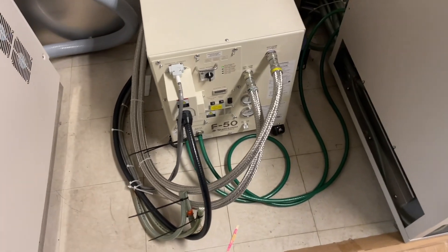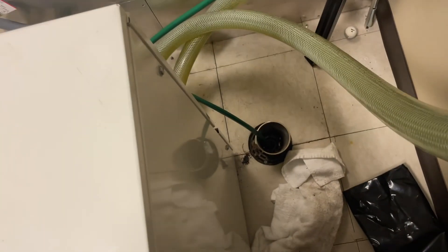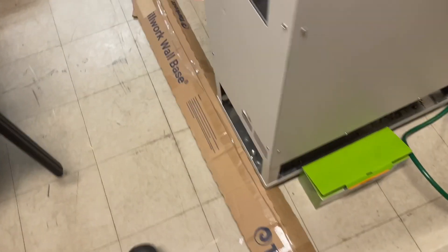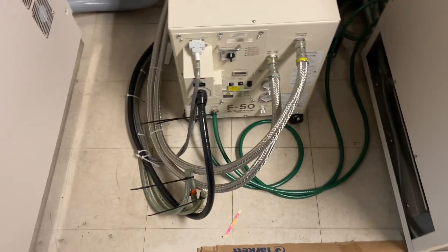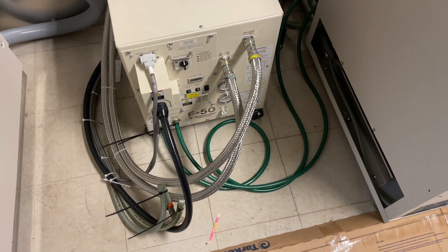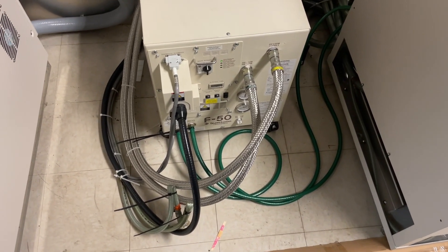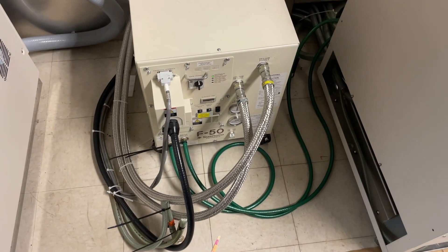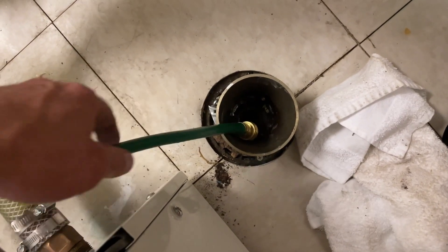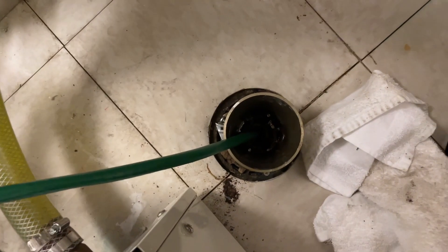Unfortunately, I'm gonna have to cut this one short. I got the helium compressor going by just feeding it city water and draining into there. We're gonna have to get back to this tomorrow — they already have to cancel all the appointments, and this will get them going through the night and keep the MRI basically sustainable. I gotta run a VRF call in the morning, so somebody else is gonna be out here to finish this up. I've got a pretty decent amount of flow here — bumped it up just a tad because the water was getting a bit warm, and it feels pretty stable now, so it should be good to go.